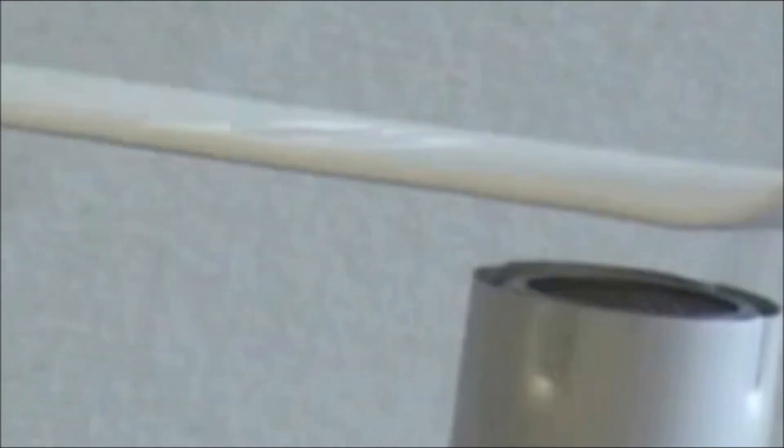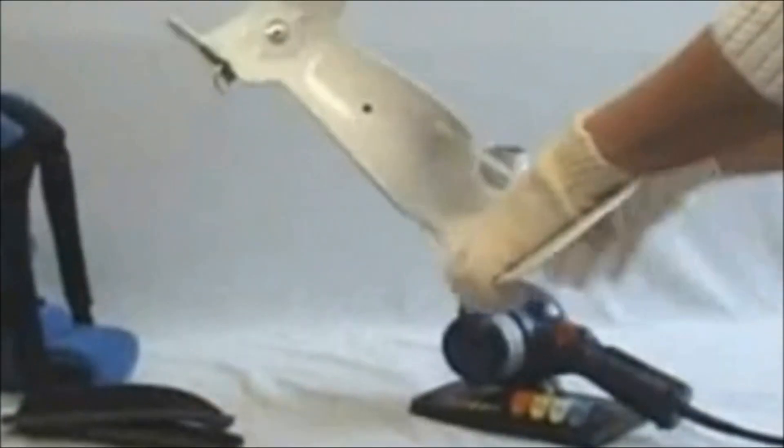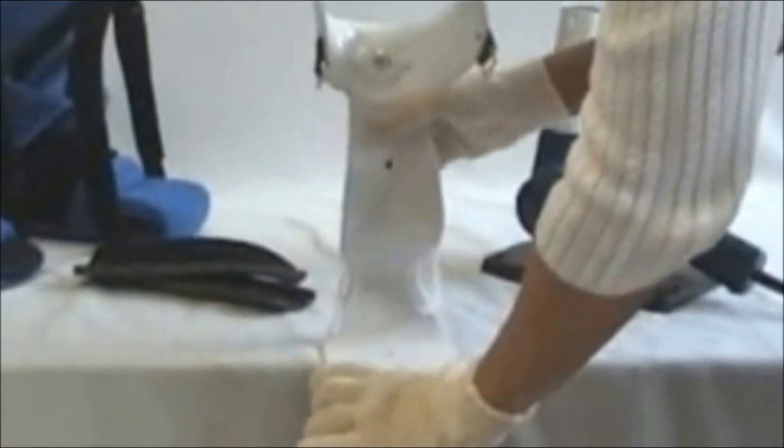The plastic is made up of polymer chains that need to be heated and stretched to change the shape. If you try to just bend these over a table or a sharp object, you will eventually make the plastic fail because it will fracture polymer chains.